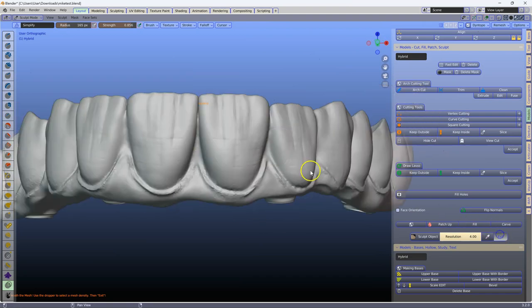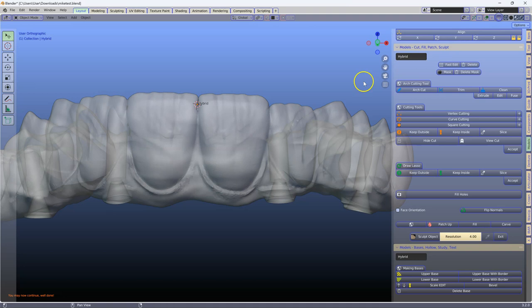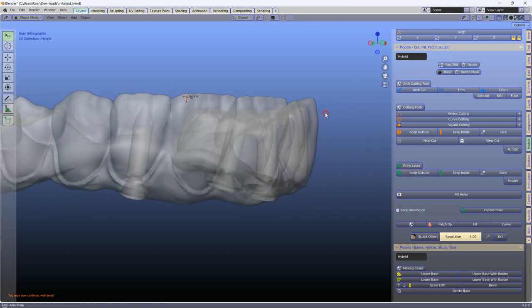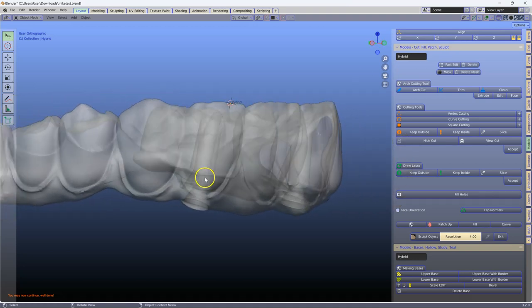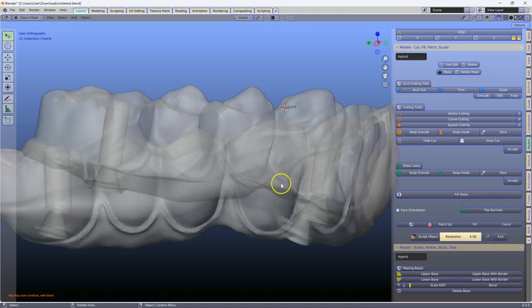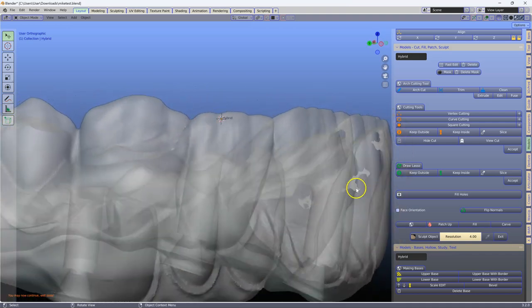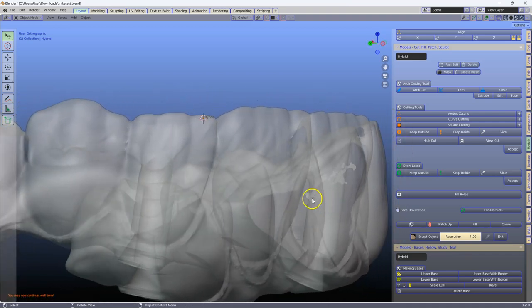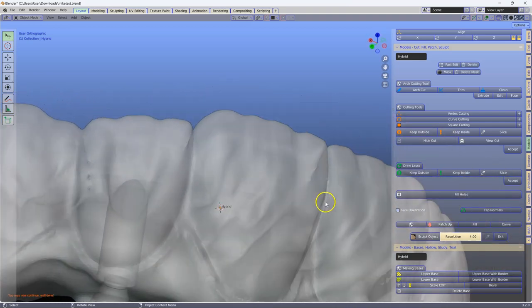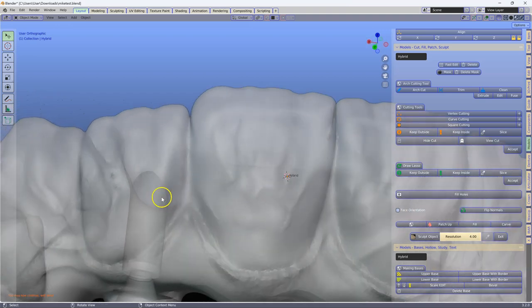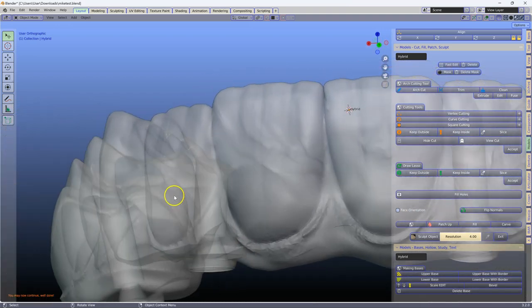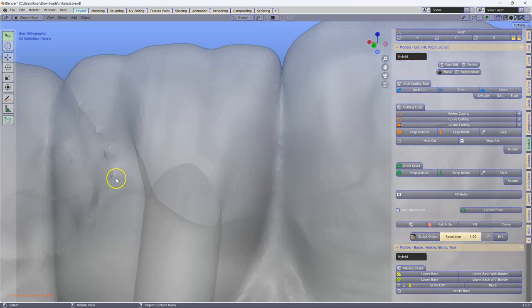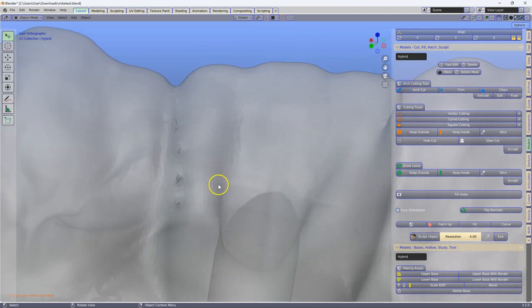Exit sculpt mode, enter transparent mode. As you can see now, we're left with these small little bits and pieces on the inside, but we have a lot more space everywhere. And here we've still got a few strands, which I'm going to fix as well.